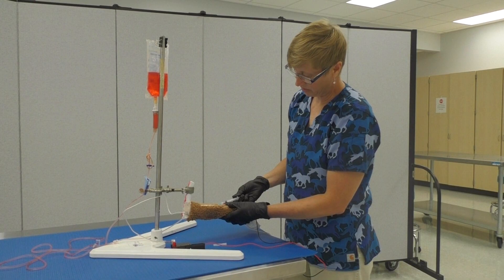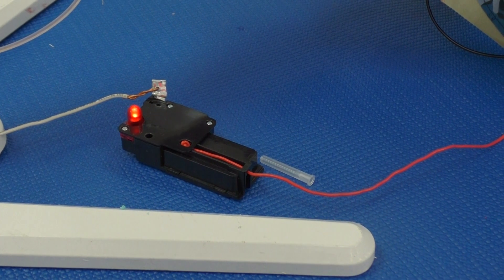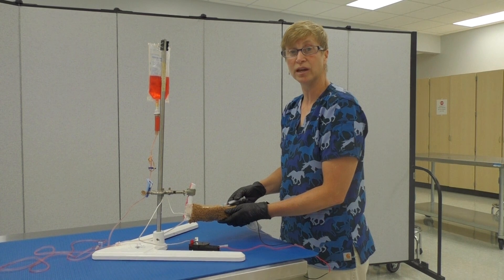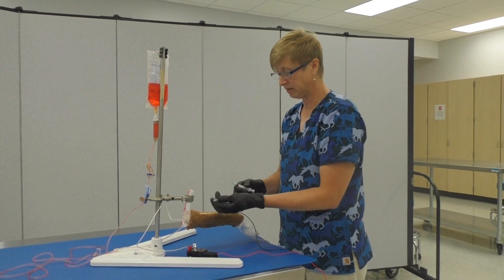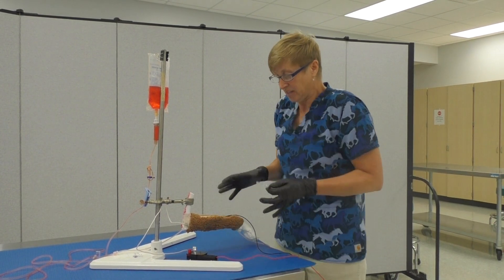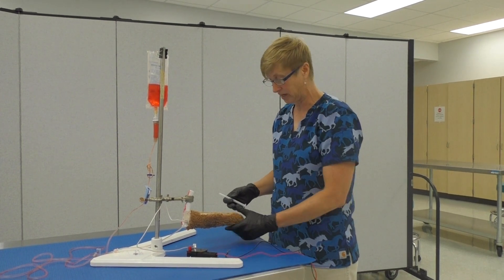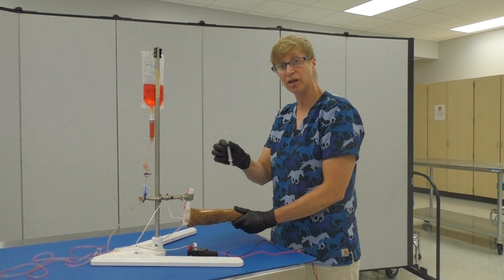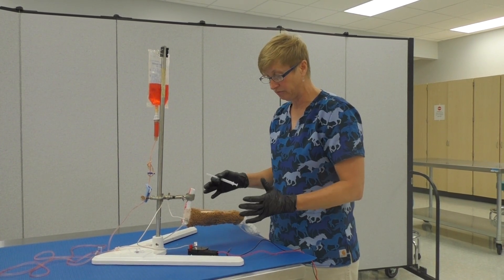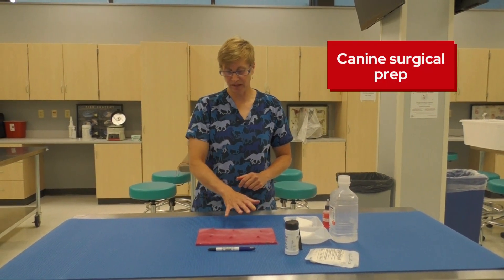If you get into the vein correctly, you get positive feedback — you can see red appearing because the circuit is completed. If you go through the vein all the way, it sets a buzzer off as negative feedback. This is the last model students use before practicing on a live animal in the junior surgery course, because that buzzer causes them to remember to keep hold of the limb and stay cautious with their sharps.